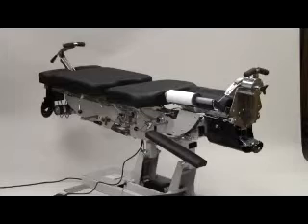A new and important option is the abdominal swing away, which drops down for patient comfort, and another option is a raised pelvic, which upgrades the table for most any technique. Another new option is the touch buttons, the operative switches for elevating and lowering the table for doctors' best comfort. And that concludes the operative options for this table.